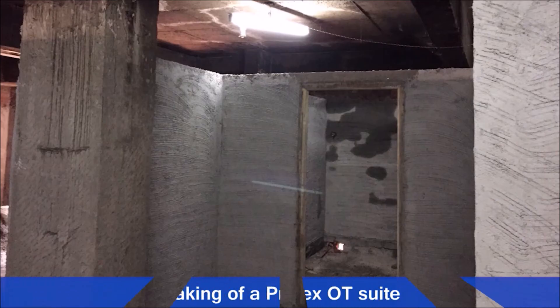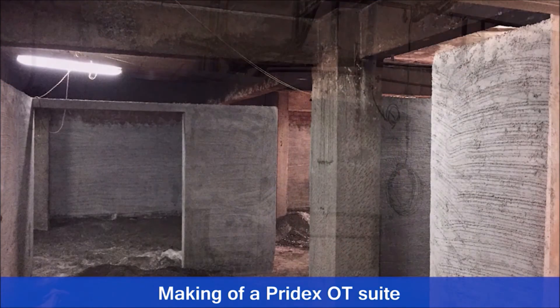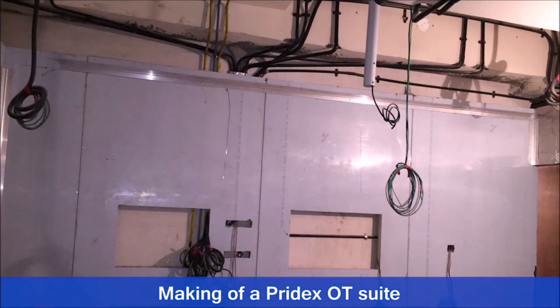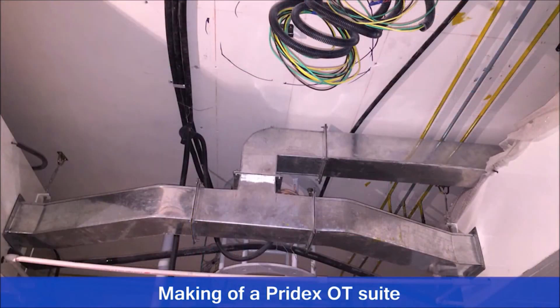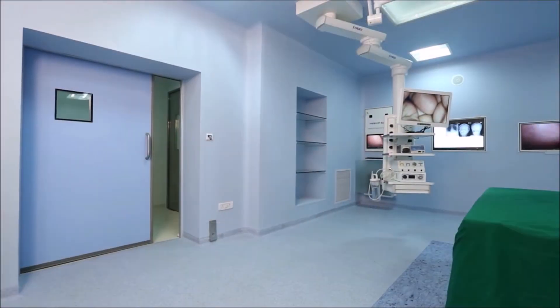This is how Pridex OT suite is built step by step. Good design planning and skillful installation is our motto.